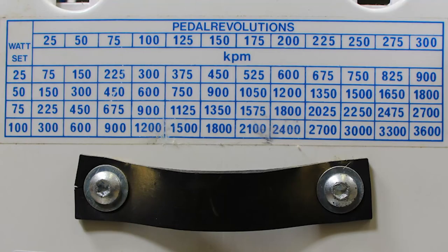In order for the scale on the arm ergometer to be correct for the power wattage you're outputting, you need to be pedaling at about 50 RPMs. If you're not pedaling at 50 RPMs, it's not going to be accurate. There is a little conversion chart at the bottom of the arm ergometer that helps you convert at different RPMs what the different resistances are, and you can simply convert those values to watts if you want to do that.